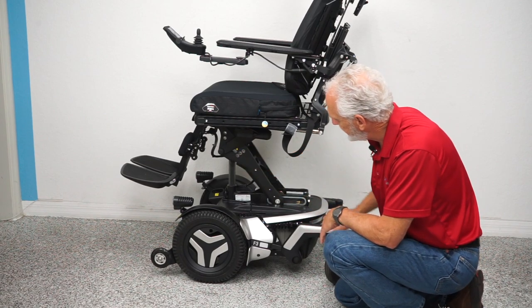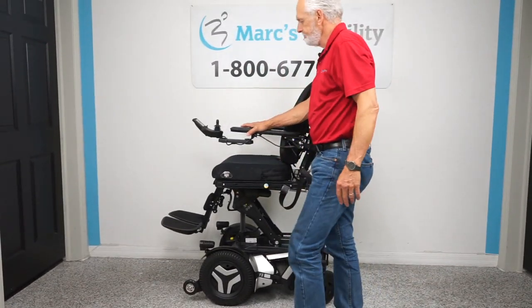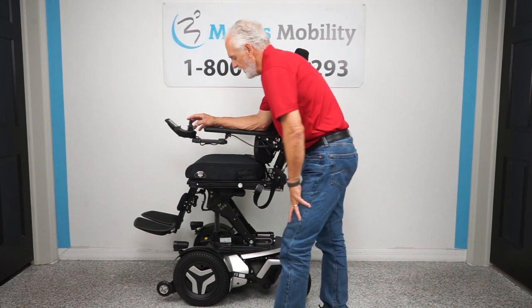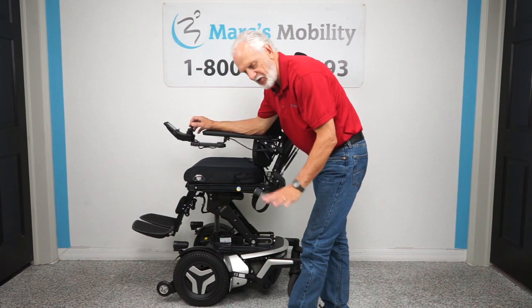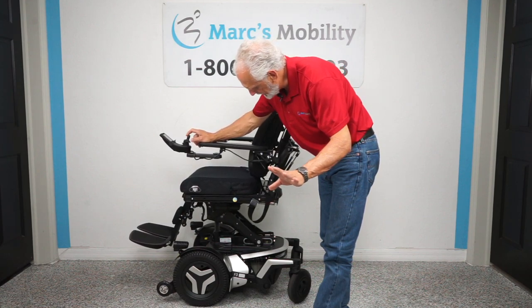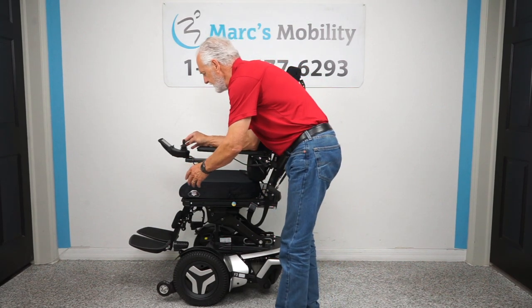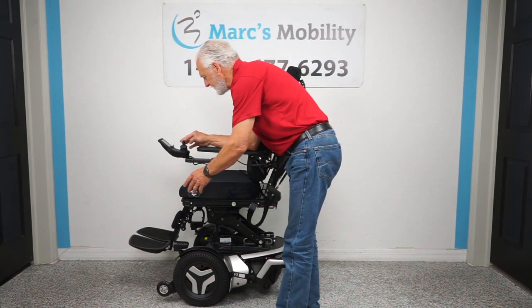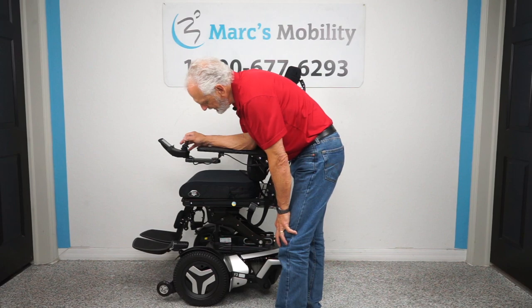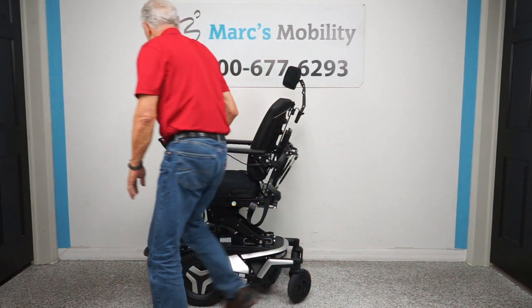You can see the armature for the seat lift — just a gorgeous power chair. We're going to turn the power back on and show you something really neat. We'll go back to the seat function and bring the seat halfway down. For those who have trouble getting out of their chairs, bring the legs all the way in and then flip them up.